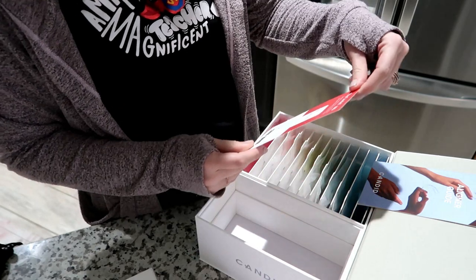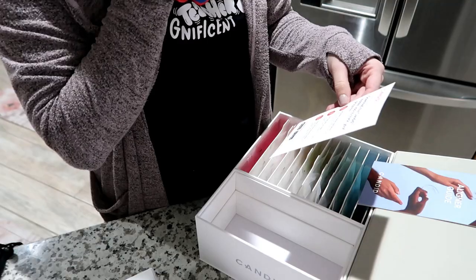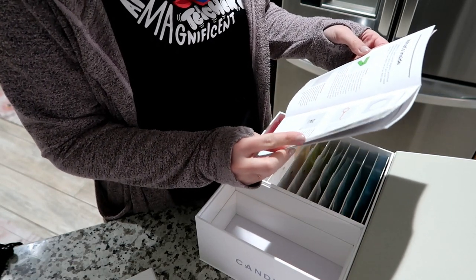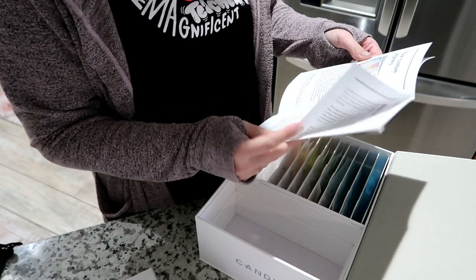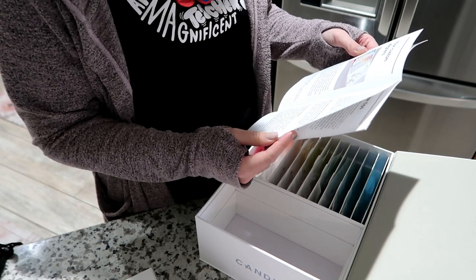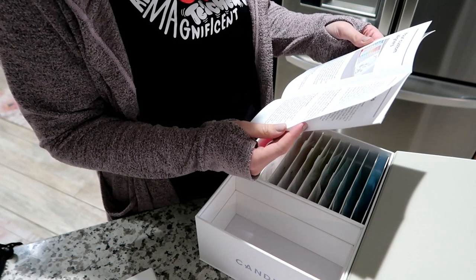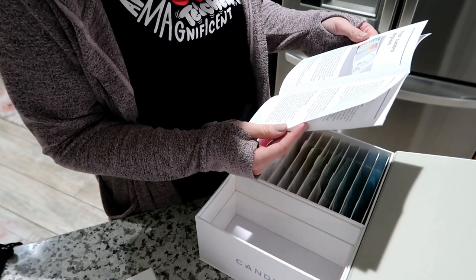There is an app for Candid. I'll screen record or show you guys what that app looks like. The aligner guide covers: the chewies, the cheek stretcher, aligner case, pull tool, and premium whitener. 22 hours each day for two weeks — switching prematurely can negatively affect your results. When putting on your aligners, you can start with either the lower or upper. Gently push them over your teeth with your index fingers for the bottom or your thumbs for the top. They should easily fit into place; use your chewies to finish fitting any spots that don't fully feel set.